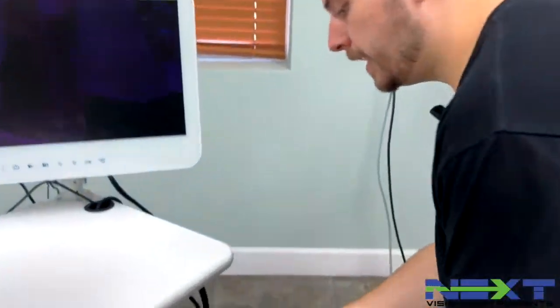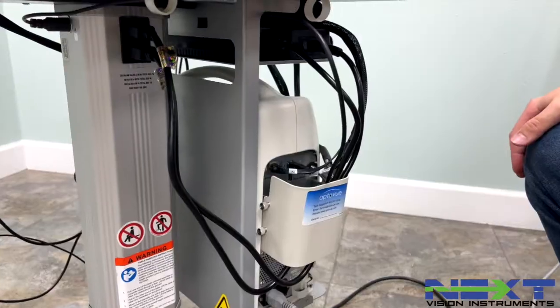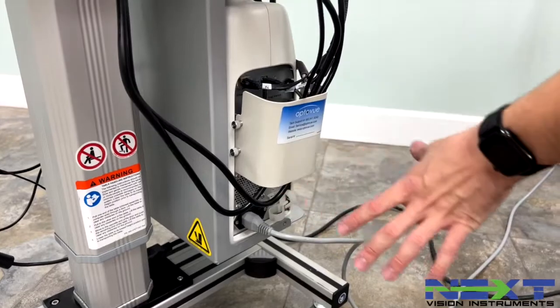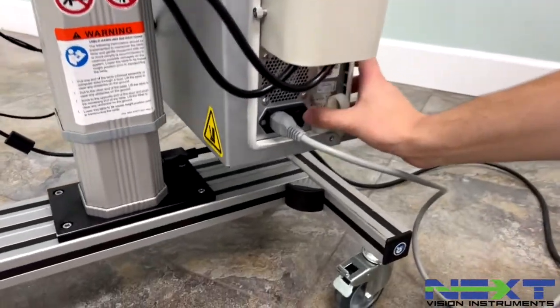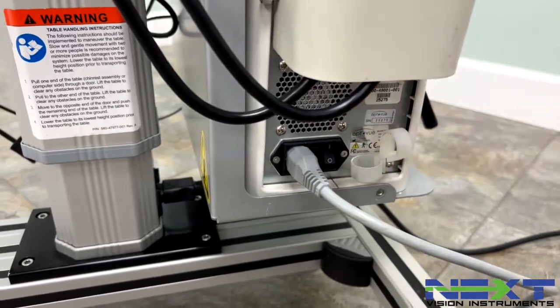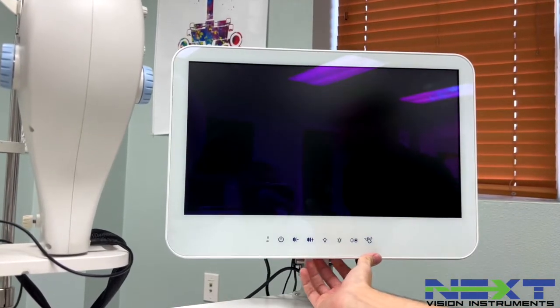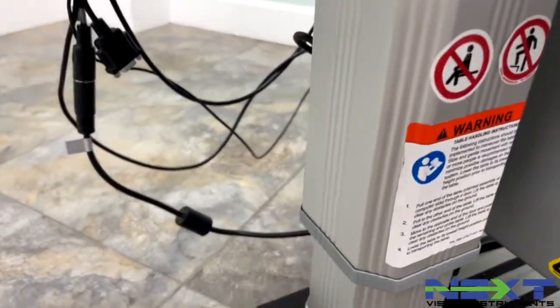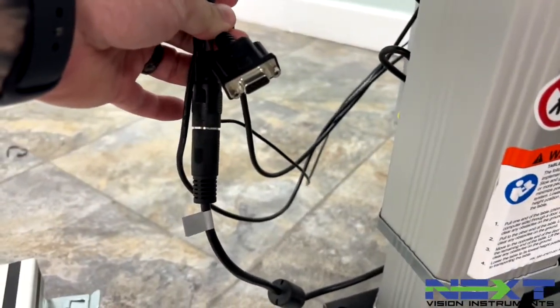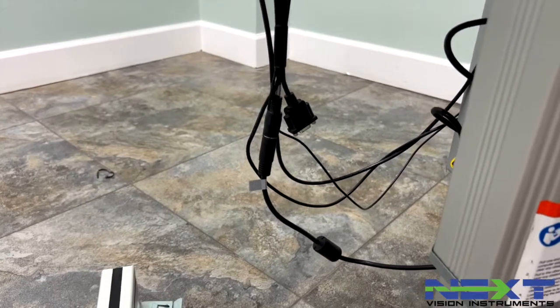As you're zip-tying your wires and getting everything secured, put the plate down over the cable area — that's extra protection so you don't bump into or disconnect any of them. The last piece is to power it on. Down on the control box, flip the switch. Up on the all-in-one, hold the power button. They'll boot up and we'll look at how to operate this. Note that there will be one empty port — nothing plugs into it, so don't be alarmed; it doesn't have a corresponding cord.